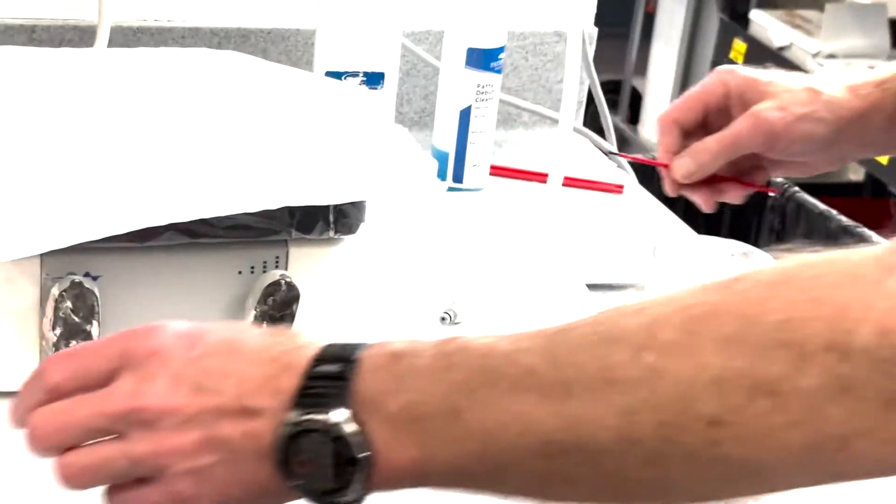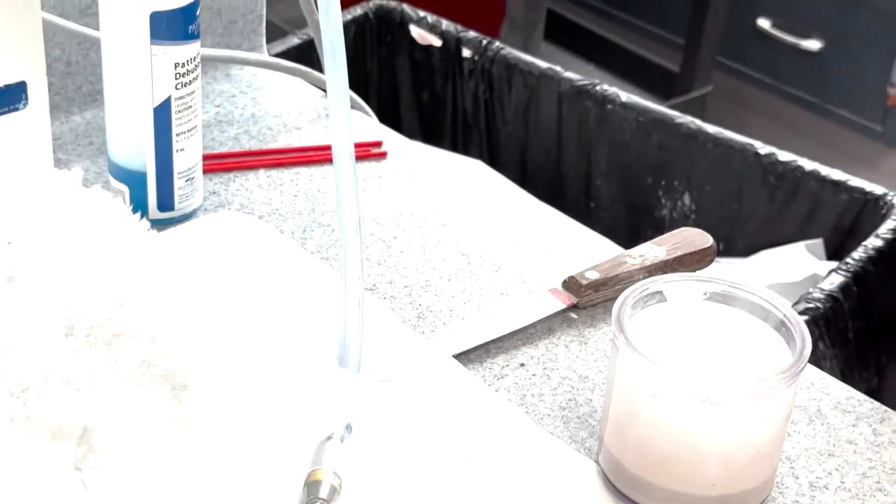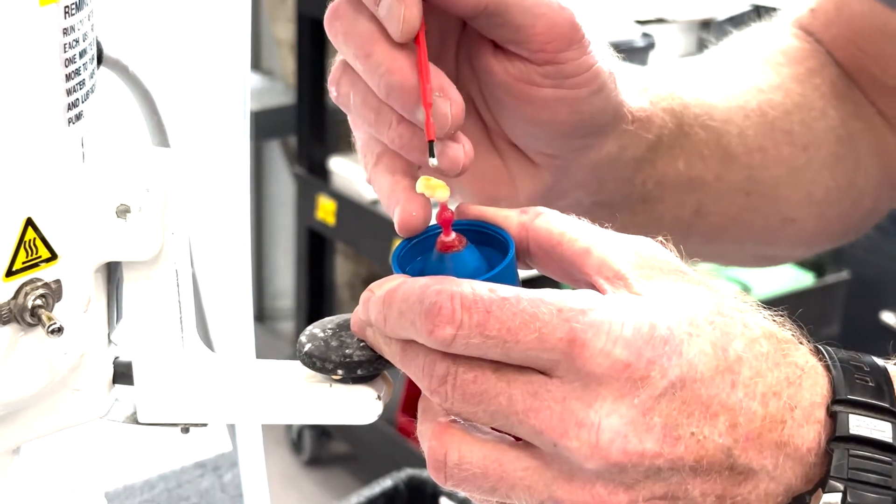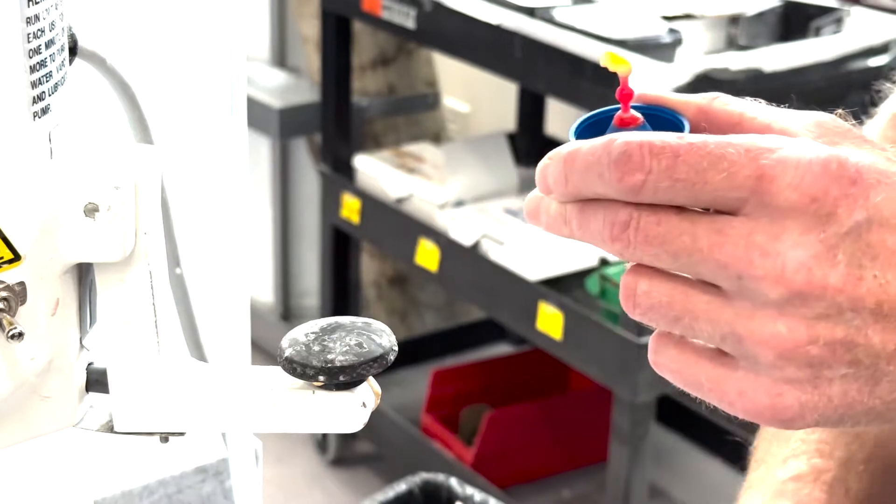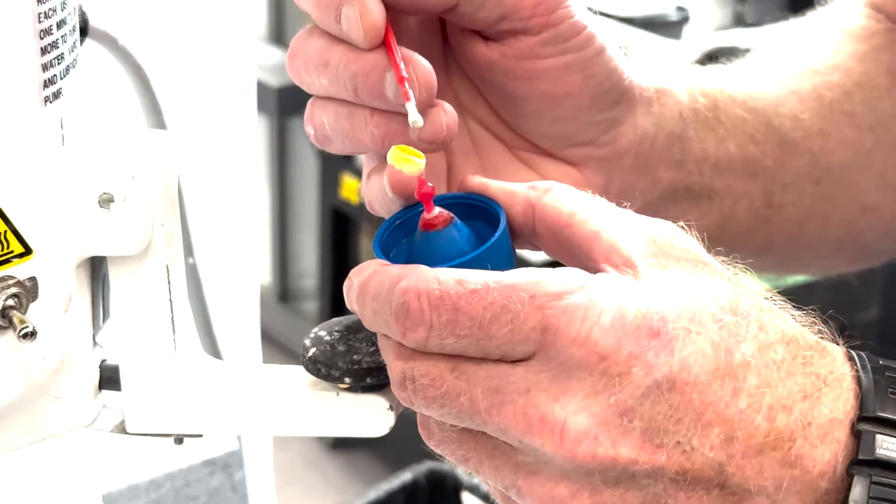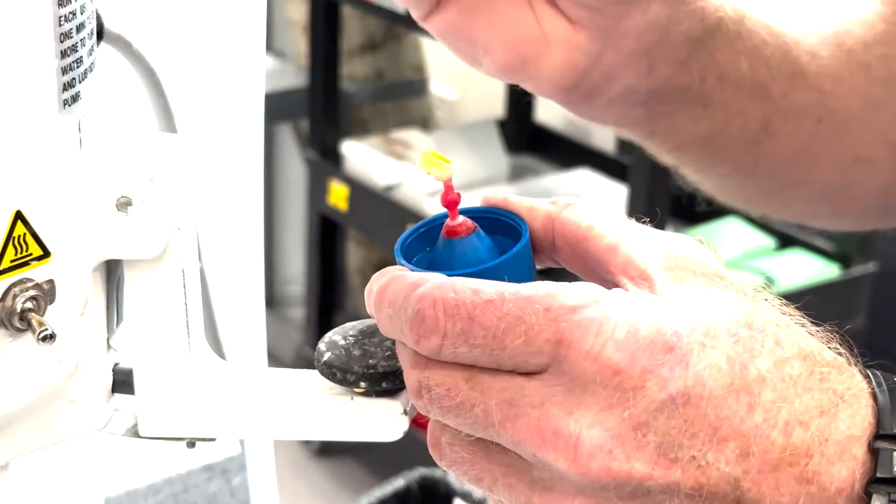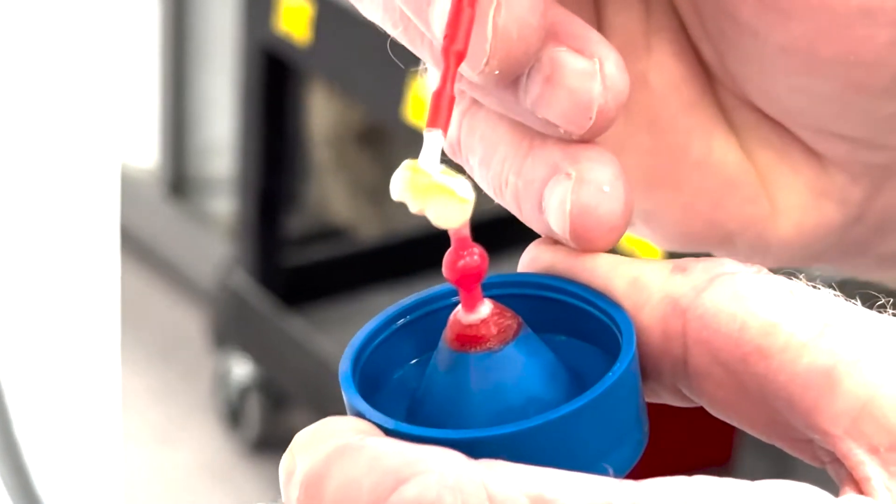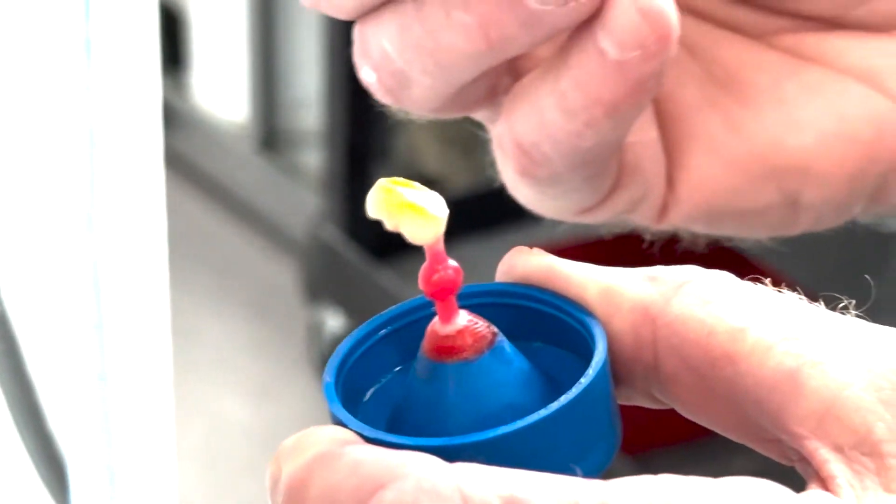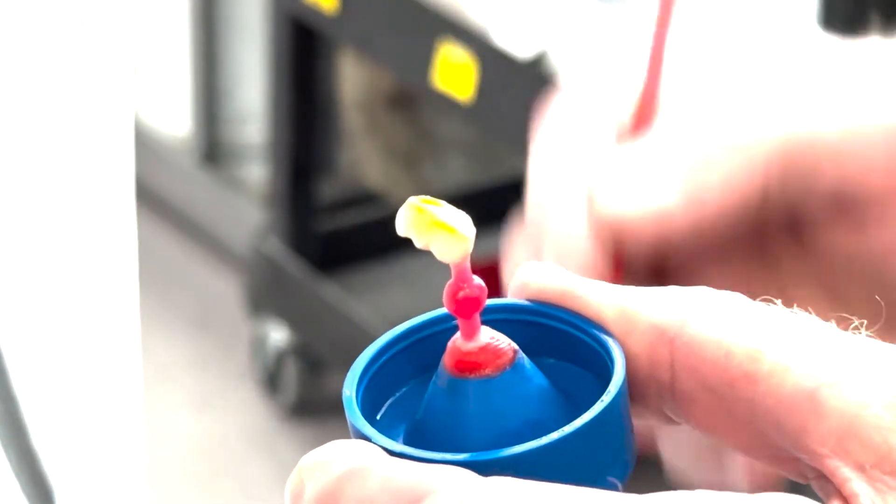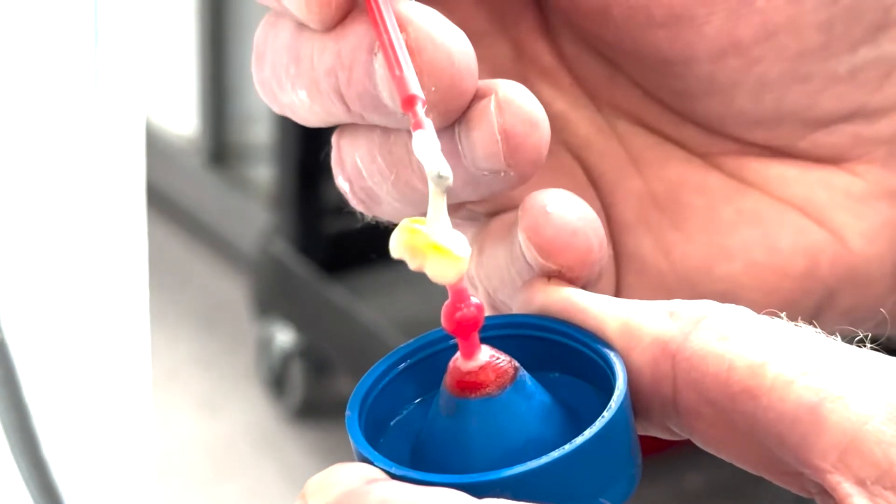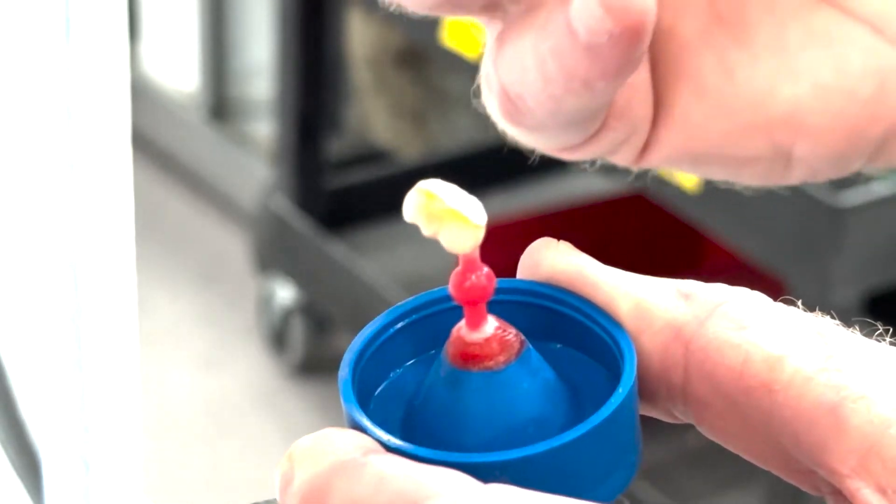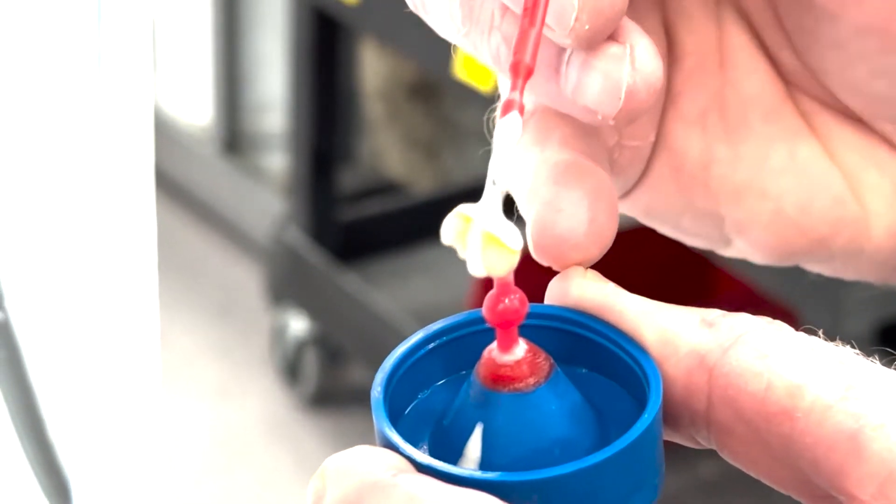Okay, so at this stage, if you can get a little bit of this up on a brush and just carefully, use your knuckle. You can over-vibrate these. But I'm going to just flow that mainly into the intaglio there. There's a little leftover surfactant. I probably overdid it on that. So I'm going to run this over and up. I'm going to run it beyond. I'm going to wash this surfactant out a little bit. Does that make sense? So not only do I want to fill it, and then watch it kind of overspill.